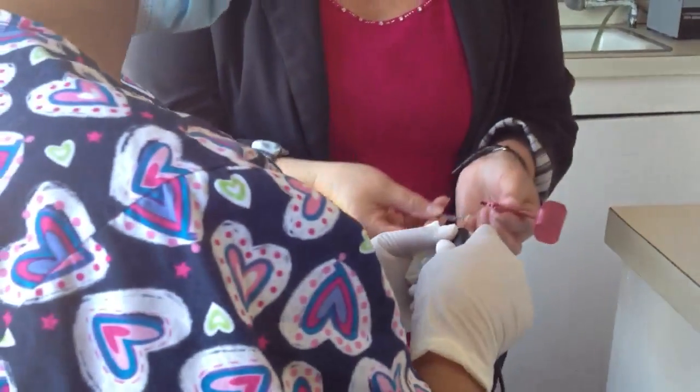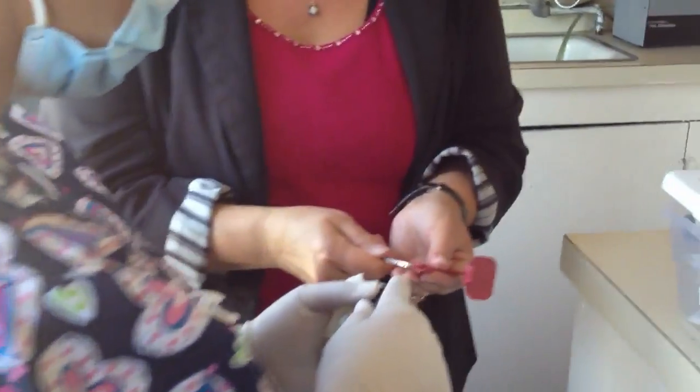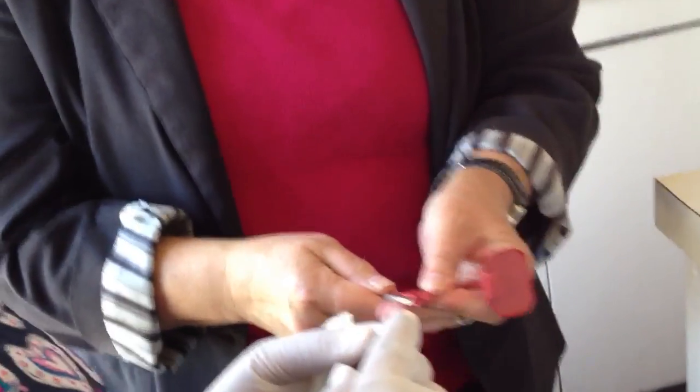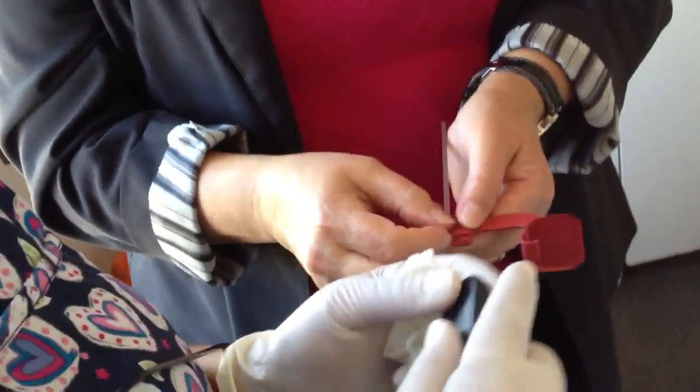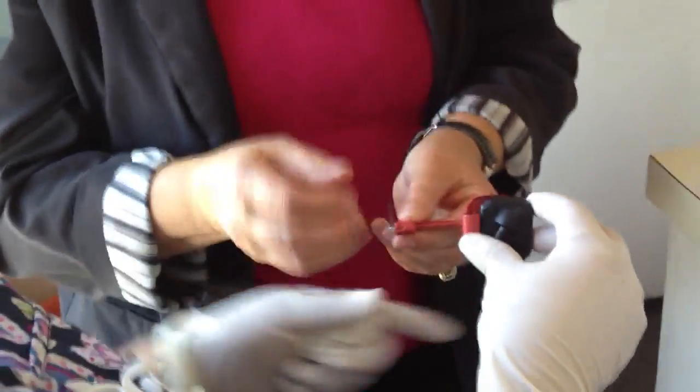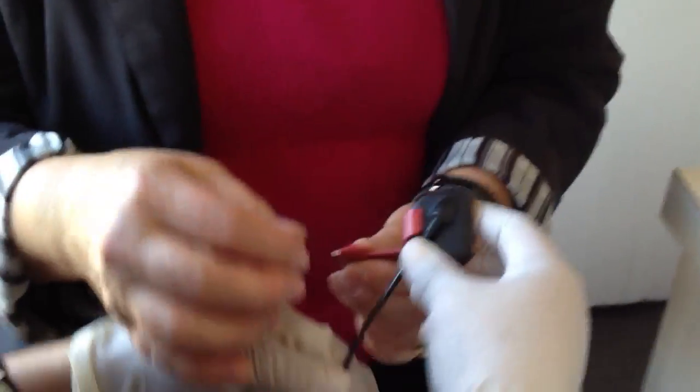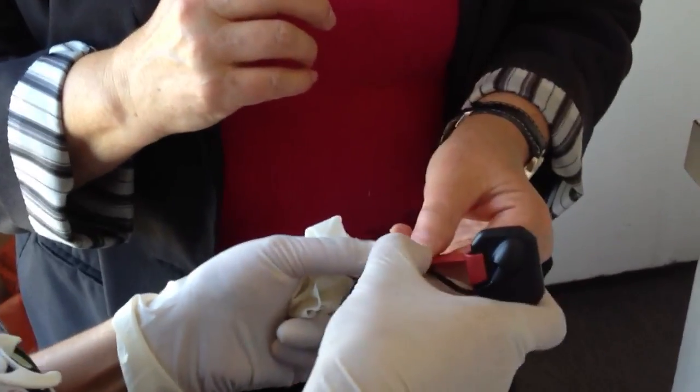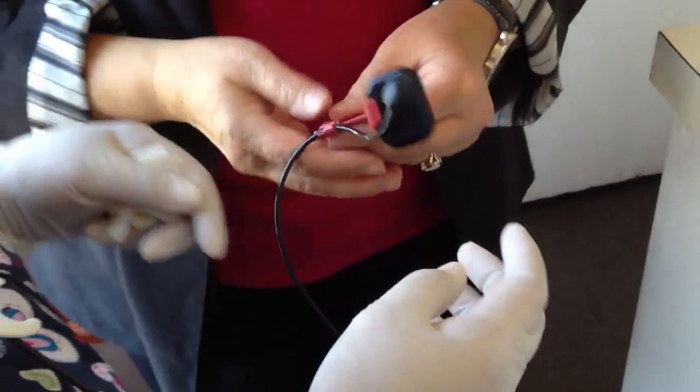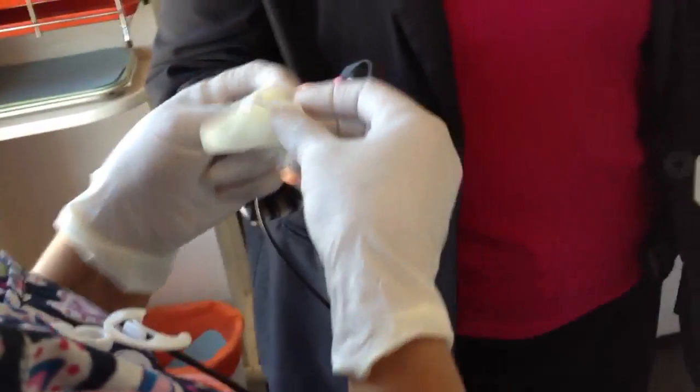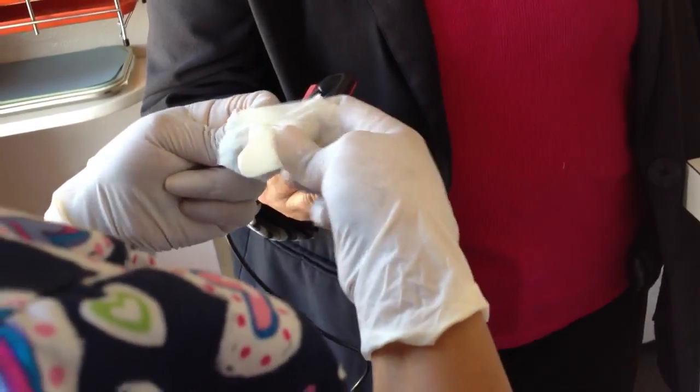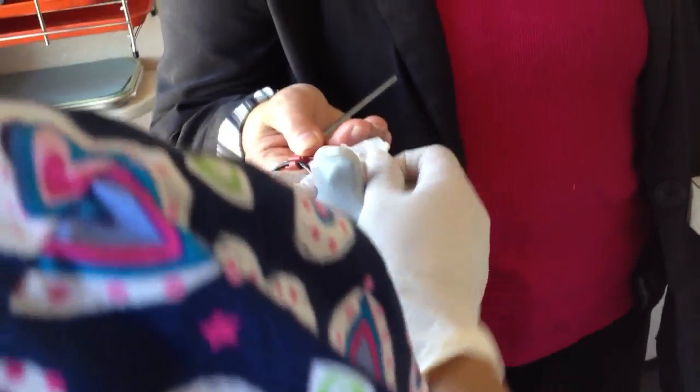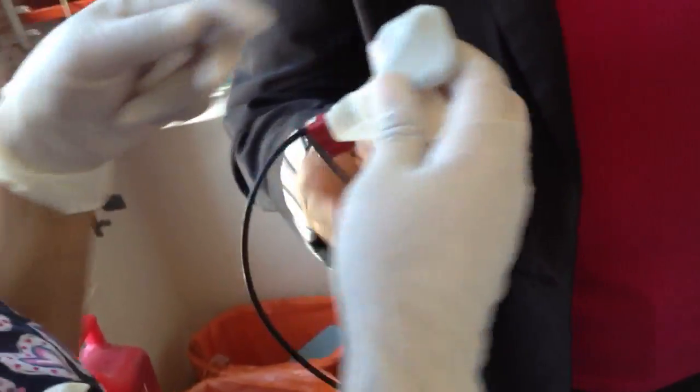I'm not saying anything's wrong as long as you're getting the answers. Okay, the front of this goes to the front here, so it would never be turned this way. Oh, okay. And then that's where the wire clips in and that clip does work. So we're going to do that. Perfect. And you're going to clip that right in there. And then you're going to cover the whole thing.